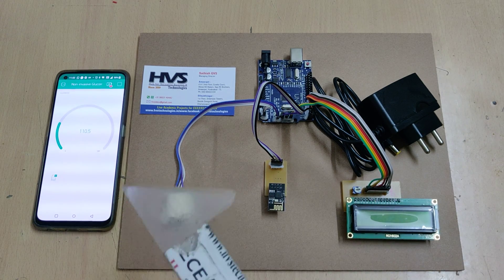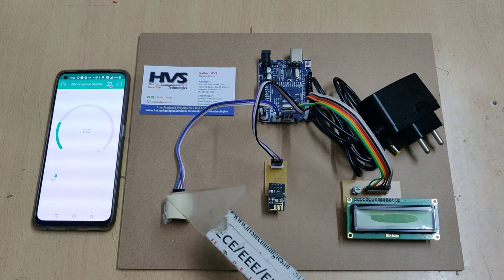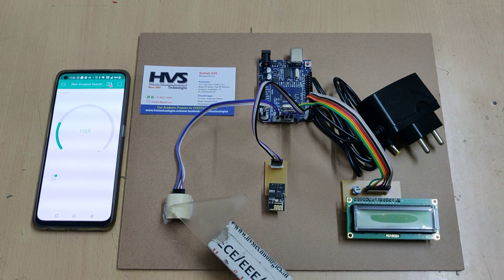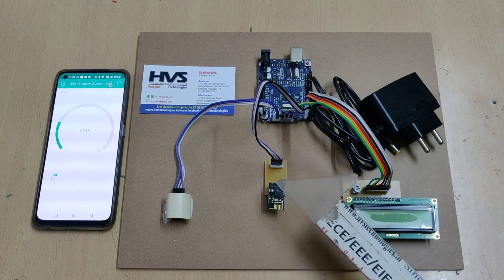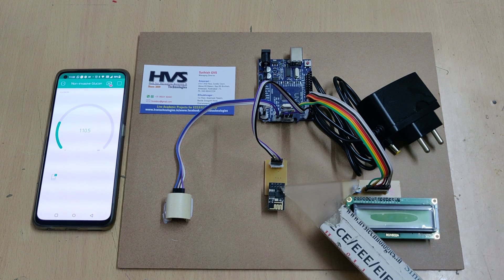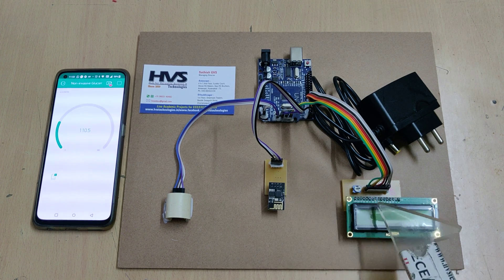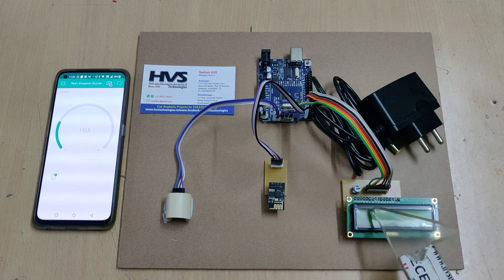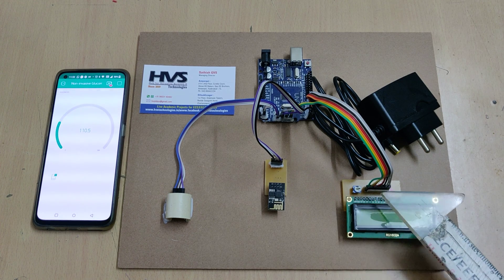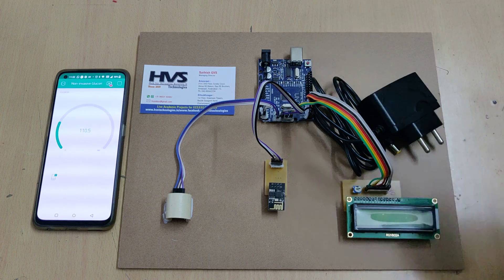We need to provide a hotspot along with data to the system. The remaining connections are the same. We have interfaced the glucose sensor at pins A4 and A5, the ESP8266 Wi-Fi module at pins 0 and 1, and the LCD module — a 16x2 model — interfaced at pins 2 to 7 on the Arduino Uno board.